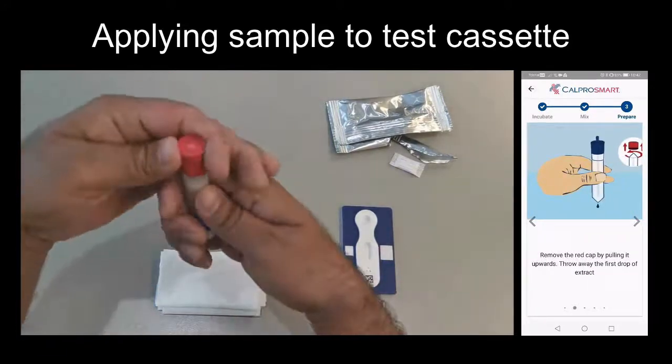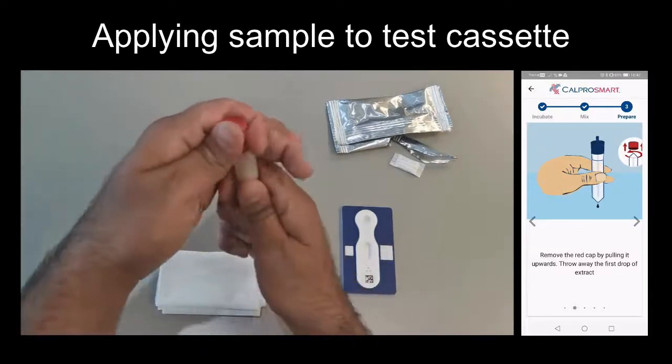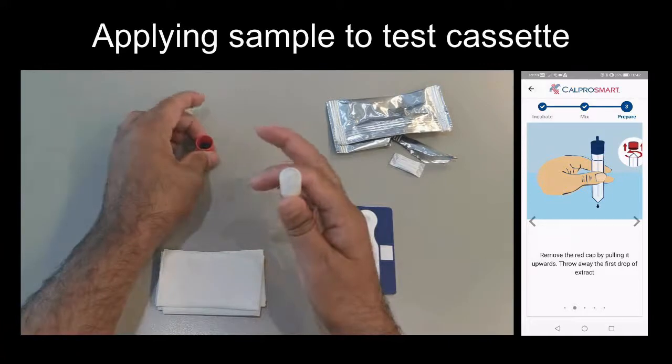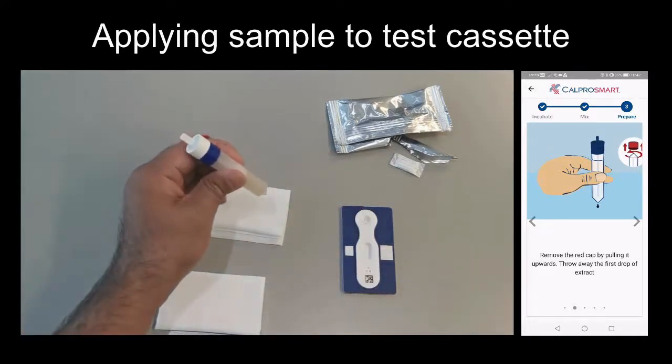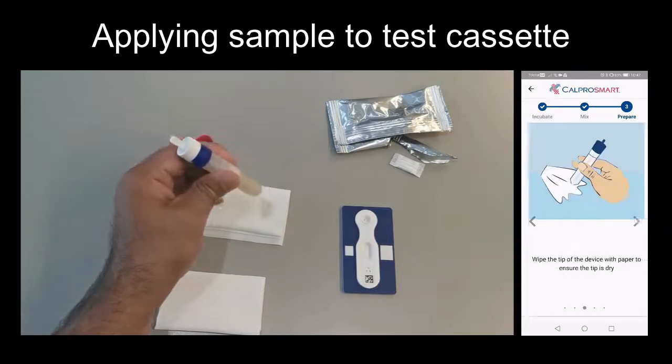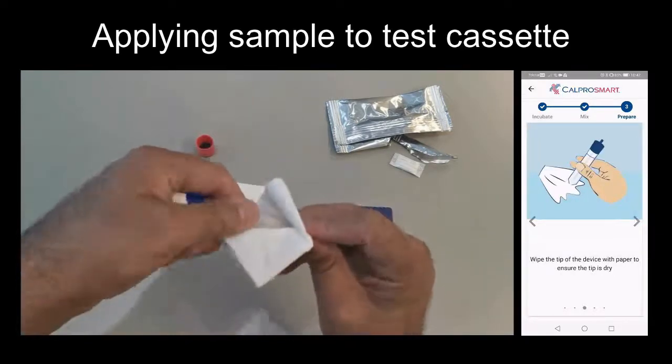Now, taking your extraction device, remove the red cap and remove the first few drops before proceeding to wiping the tip dry.